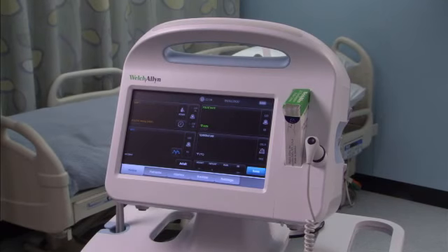This was a brief overview of how to set up your monitor, including powering it up for the first time. We also covered powering down the monitor and attaching the accessories.